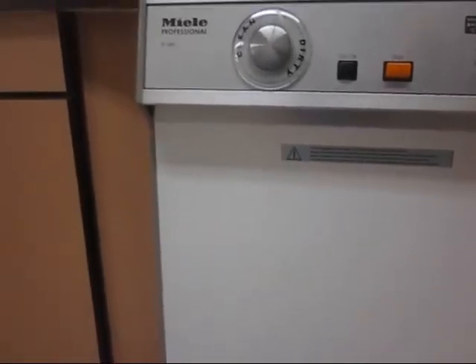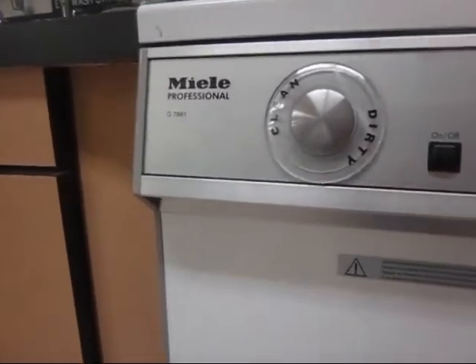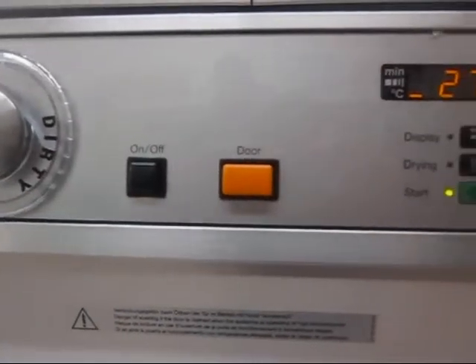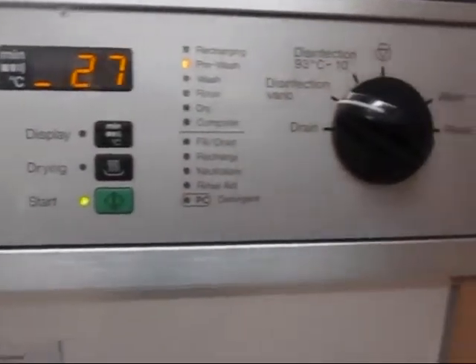Reaching temperatures of 200 degrees Fahrenheit, this instrument washer inactivates many forms of life, even before sterilizers have the chance. For over 100 years, Miele has produced some of the world's finest washing machines. This can be yours for the low, low price of $9,799.